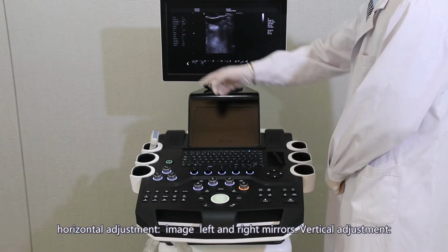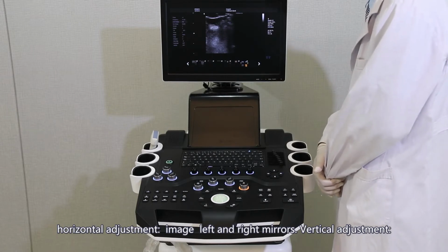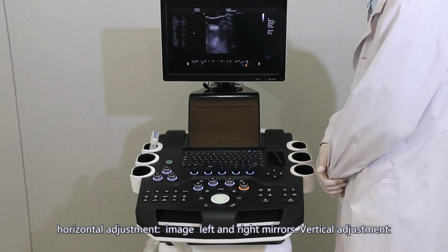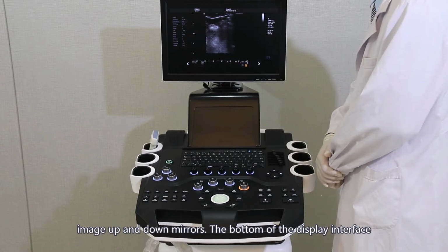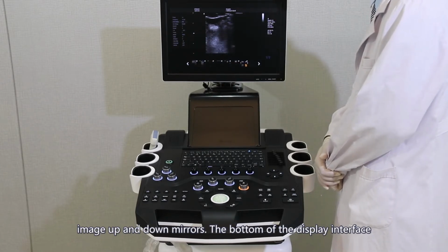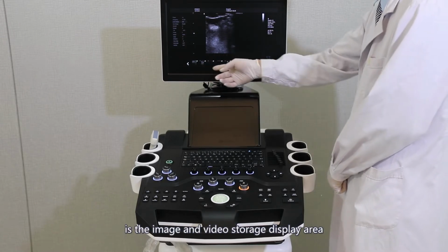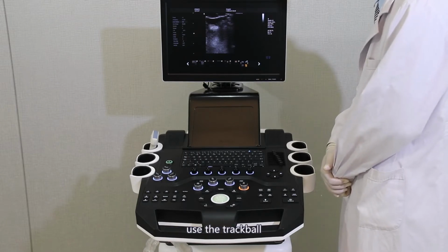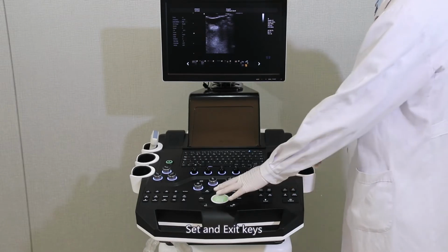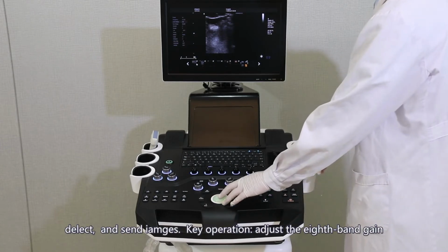Horizontal adjustment. The image mirrors left and right. Vertical adjustment. The image mirrors up and down. The bottom of the display interface is the image and video storage display area. Use the trackball, set, and exit keys to view, delete, and send images.